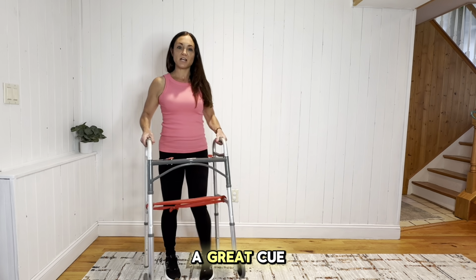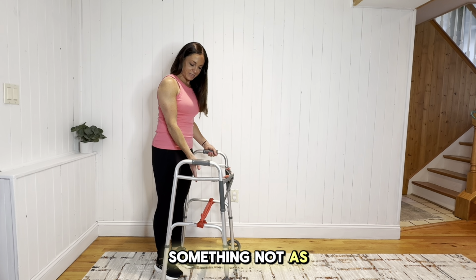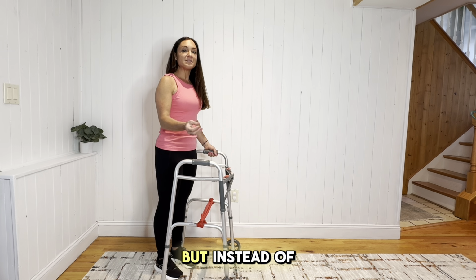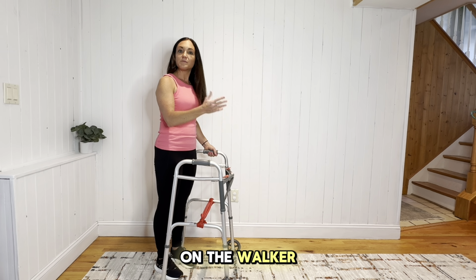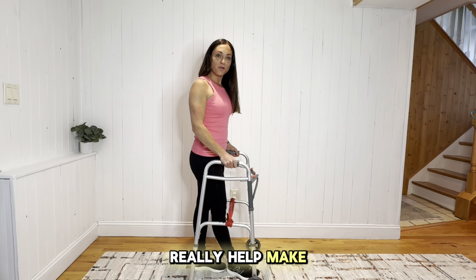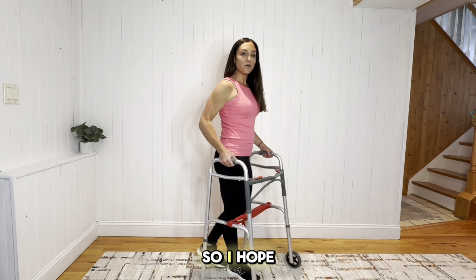Remember, this is a great cue. You can even use maybe a white band, something not as bright as the red, so it blends in a little bit. But instead of using those cues on the floor, like I said, this really helps, and it can really help make your patients safe around their house or even out in the community. So I hope this tip helped.